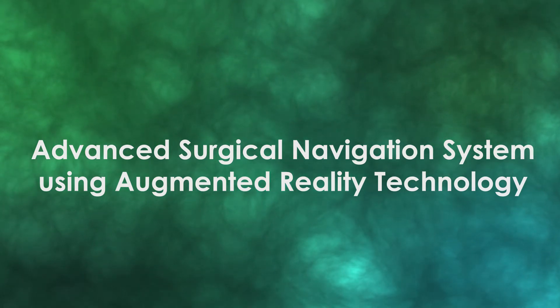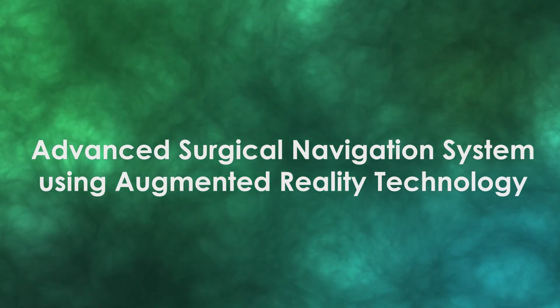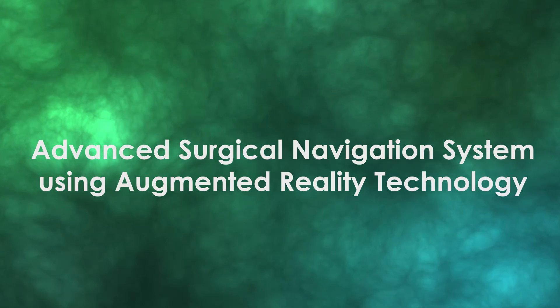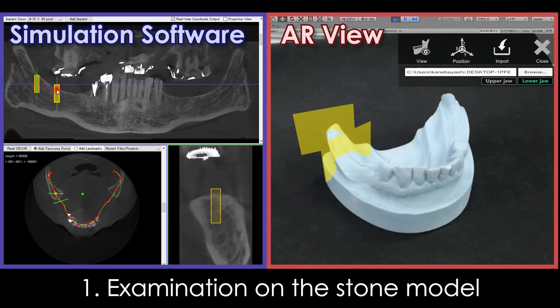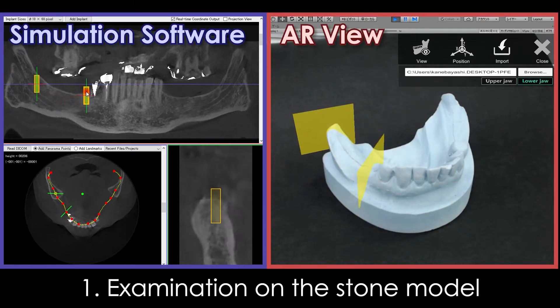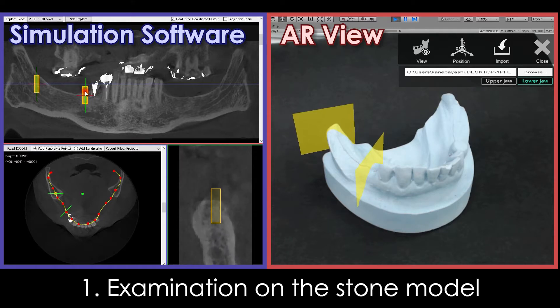Advanced surgical navigation system using augmented reality technology. Examination on the stone model. The left area is the simulation software screen, and the right area is the AR view screen.